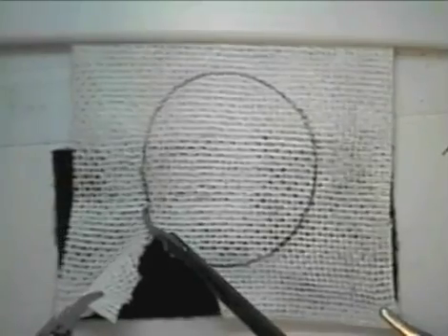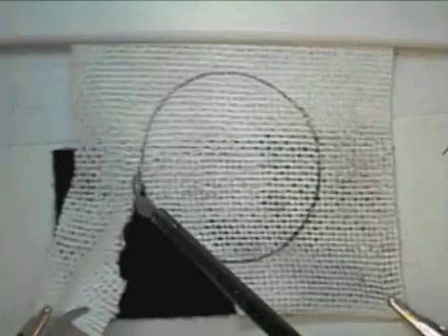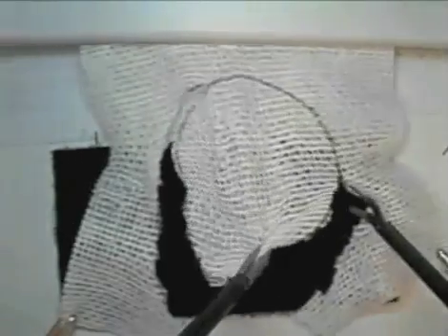Note, the gauze is two-ply, but the first layer on which the marking is made is the layer on which the accuracy of the task will be based. Many people find it easier to cut both layers.